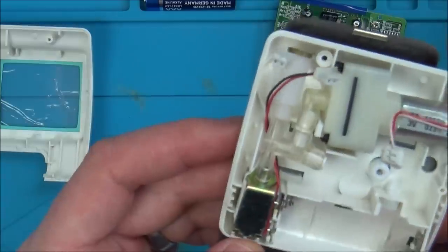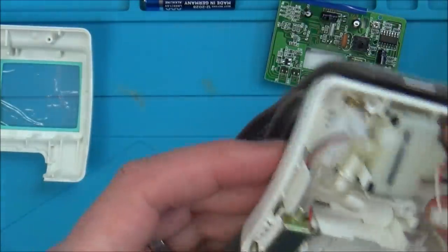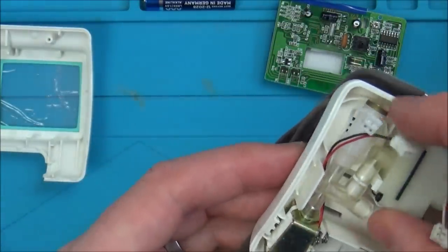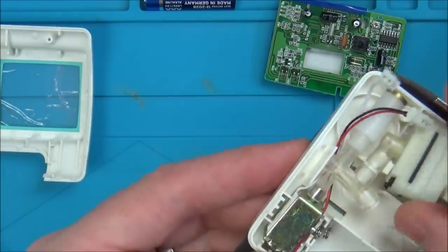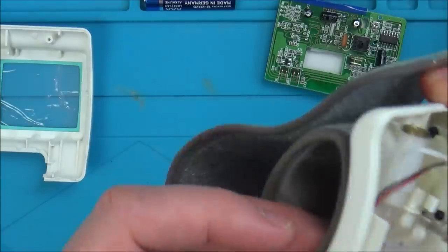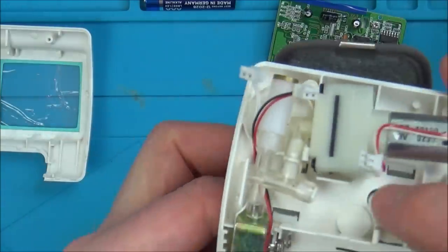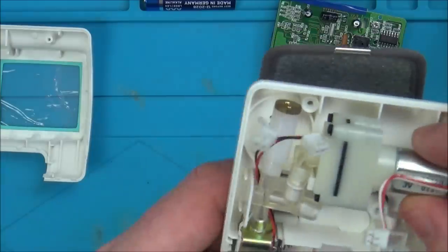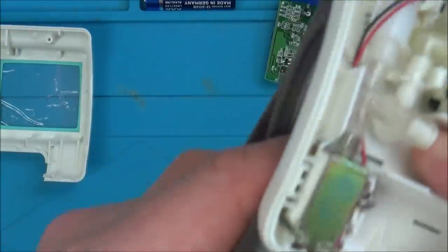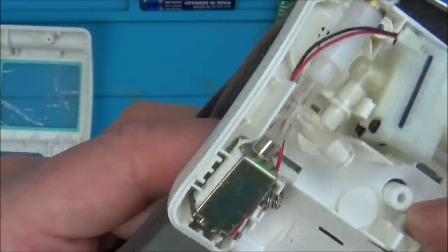So what's all this about here then? What do we need all this for? This seems to be independent of this. So what's all this for? This is obviously how it pumps - and this is how you pump it up this side here. So this side pumps it up and this side measures it.